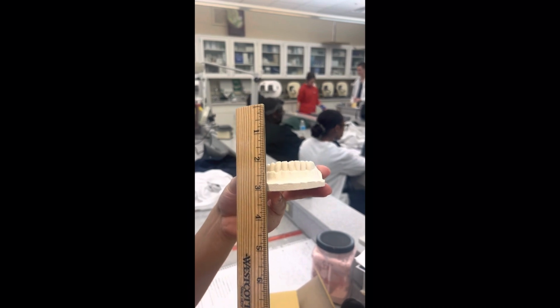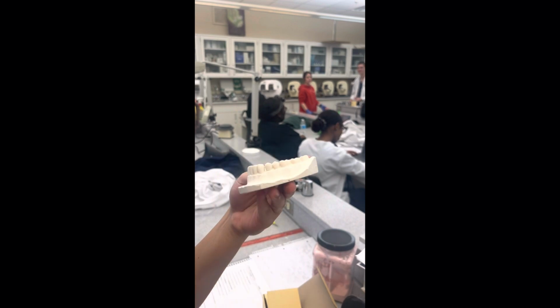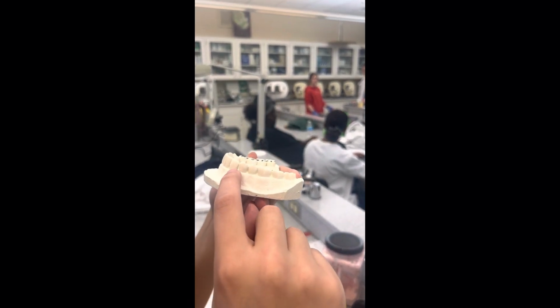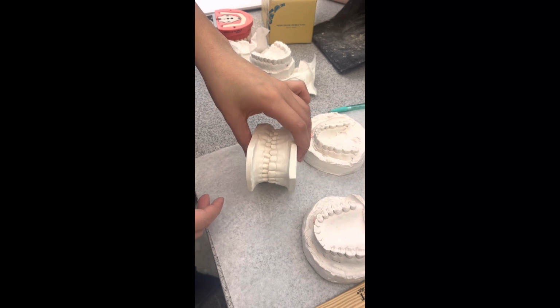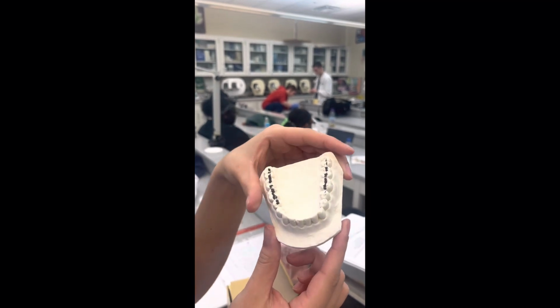For step 9, the maxillary cuspid point should be centered to the cuspid tooth. For step 10, the buccal cut should sit on both sides without holding the stone model, and all anatomy should be included. For step 11, the mandibular arch should be rounded from cuspid to cuspid.